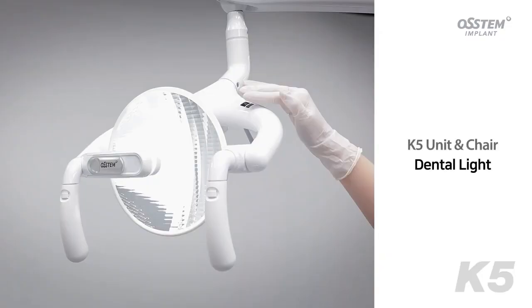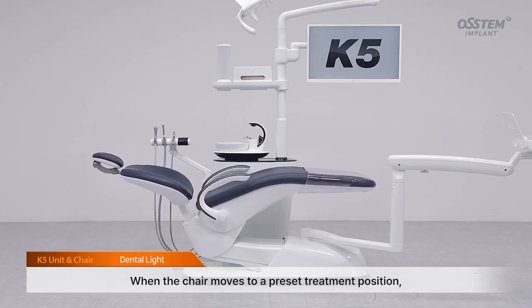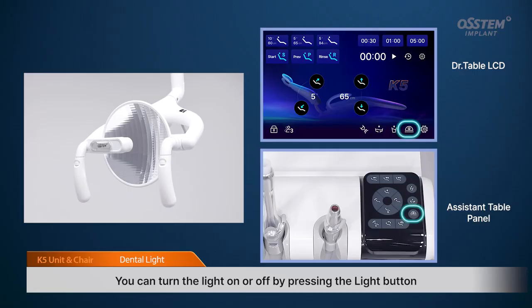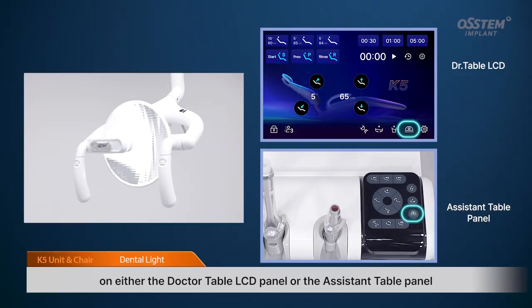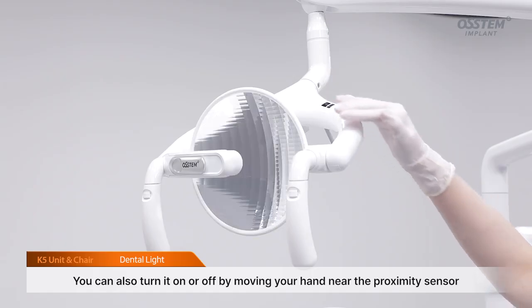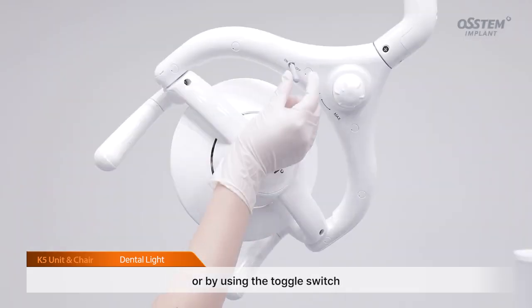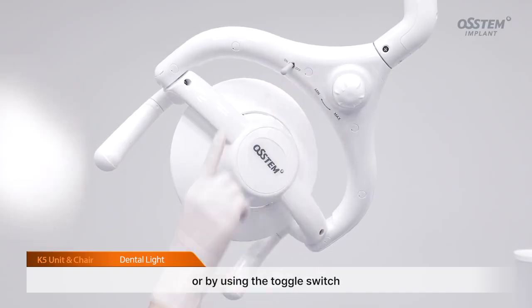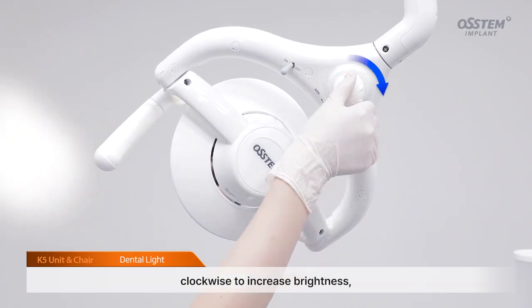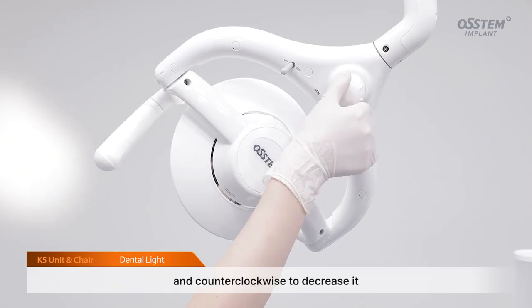Dental light. When the chair moves to a preset treatment position, the dental light turns on automatically. You can turn the light on or off by pressing the light button on either the doctor table LCD panel or the assistant table panel. You can also turn it on or off by moving your hand near the proximity sensor, or by using the toggle switch. Turn the brightness control knob located at the bottom of the light head clockwise to increase brightness, and counterclockwise to decrease it.